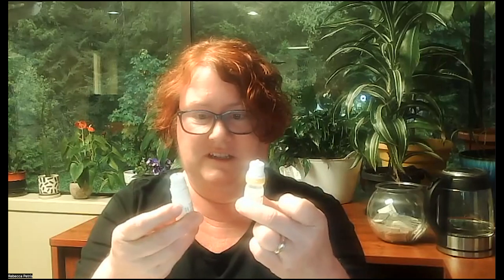One last thing to remember about these types of bottles: some of them are clear so you can see how much is left, and with the white ones you can't see, but if you rattle it you can hear it. They're never going to be completely empty - there will always be some left. People new to this often feel cheated, but that's a necessary part of the design. They're designed to have 10 full milliliters available, so when you're done being able to get drops out, you should have actually used up the 10 mils, even though there's some left that you can't get at.